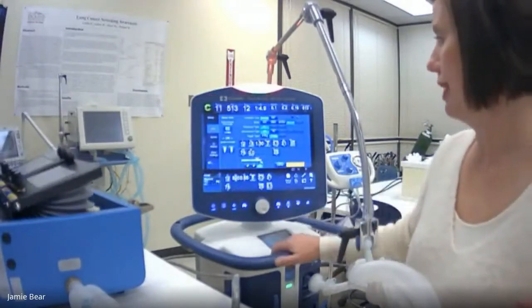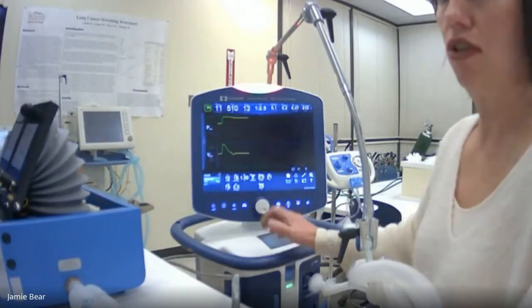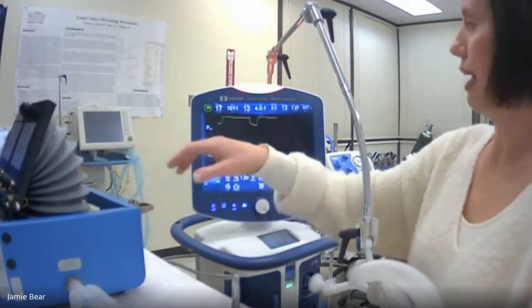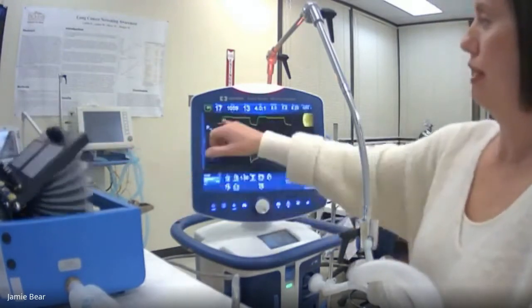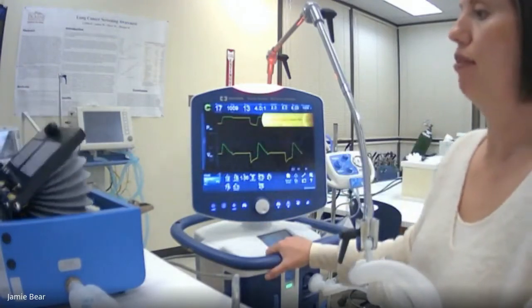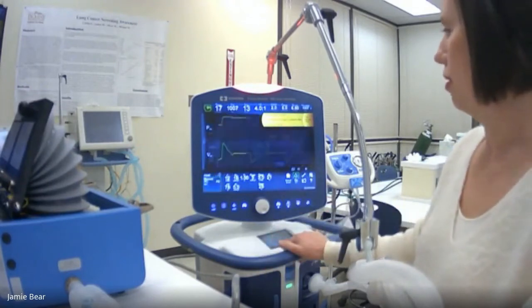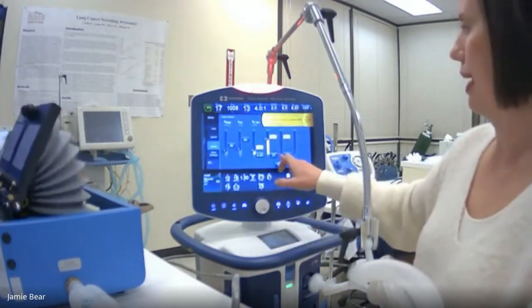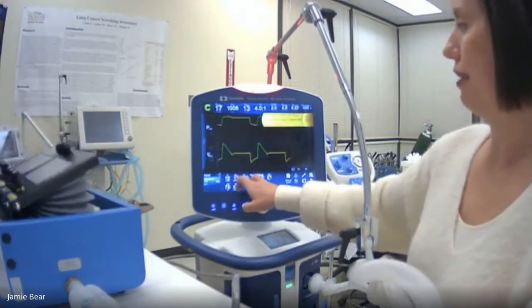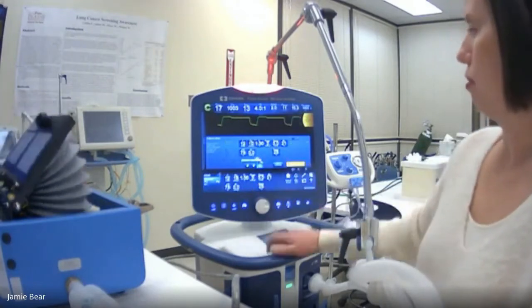Okay, so let's check this out. Let's look at our waveforms on bilevel. So you'll see, watch the lungs. And if you look at the waveforms, this is inhalation. Now it's warning us that we're getting high tidal volumes. And once again, we've got our compliant lungs. So I'm going to just go and check the alarms here. Yep, I'm still at, now I went up to 950. So I'm going to really have to get this pressure high down there. So we'll go around 10.